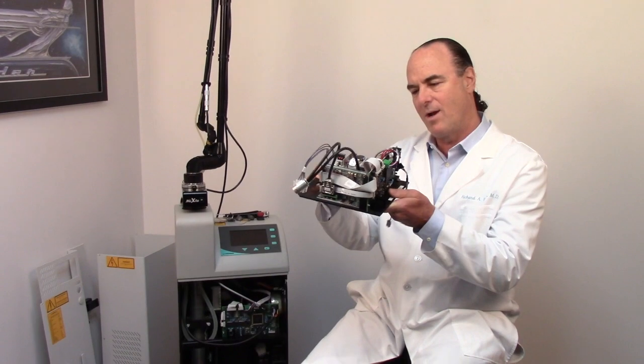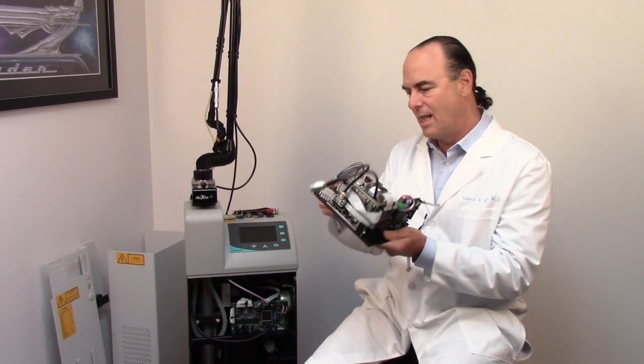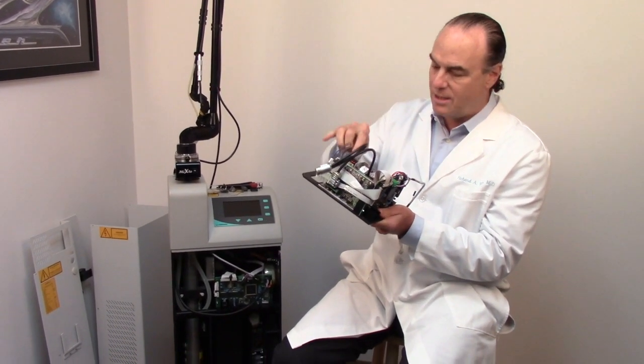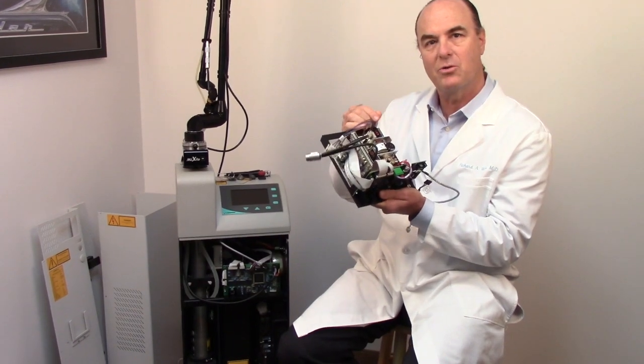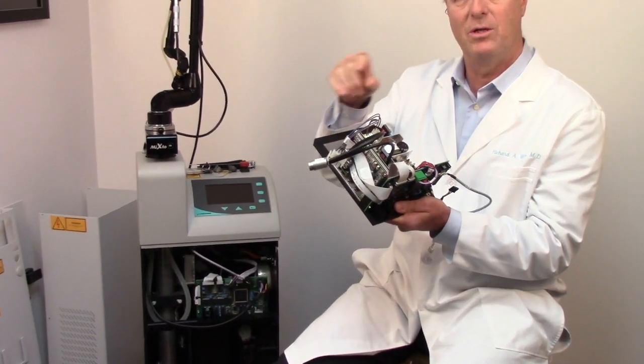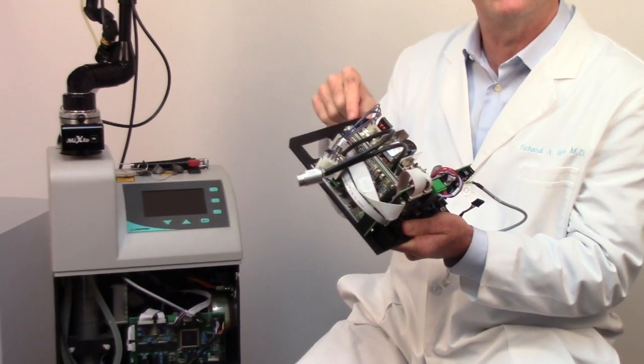This thing I'm holding in my hand, by the way, is a unit that we're replacing today. All this is, is the electronics to control the direction of the laser when we do the scanning beam of the laser.